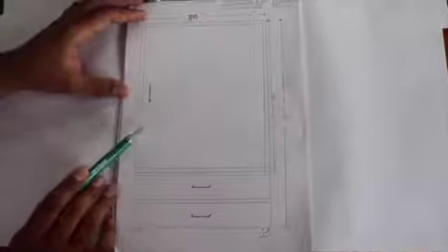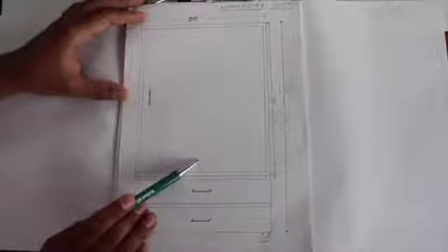This compartment I use to keep or preserve the prepared Kshara Sutra. This compartment will be having multiple hangers which are framed with aluminum and one ultraviolet light for maintaining a disinfectant environment.